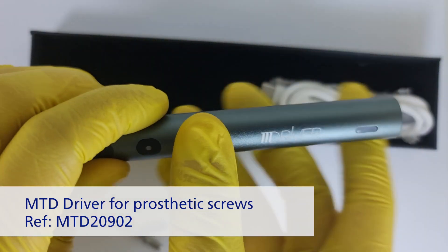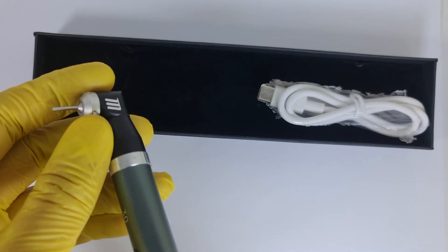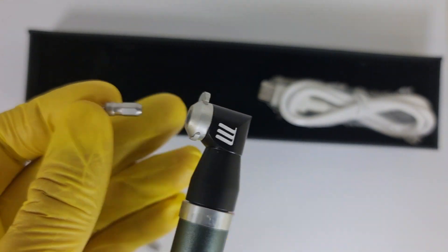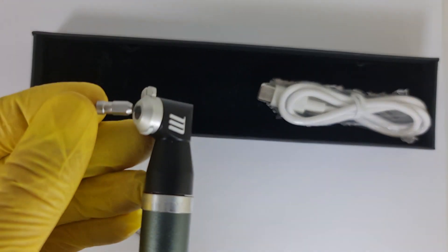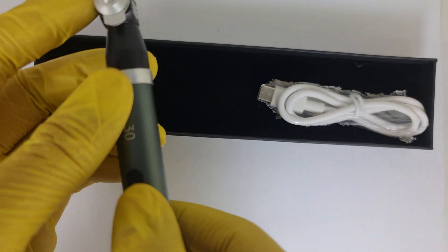Let's start with the 30. You could immediately see the difference from the previous generation, and this is the lockable milled head which provides more secure grip and prevents the whole bit from falling down to the patient's mouth.